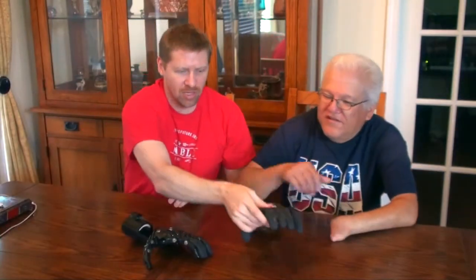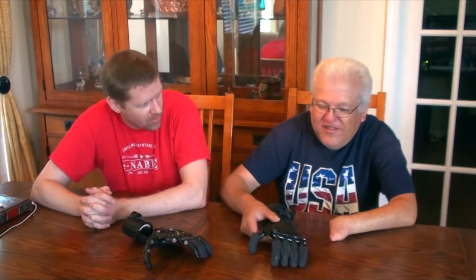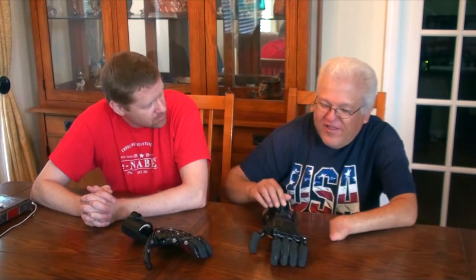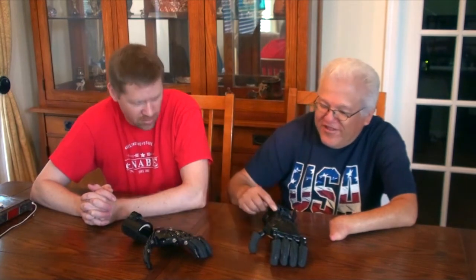Over the last few weeks, which of these have you found yourself relying on? The Osprey, yes, a lot more. So tell me more — other than the grip strength, is there anything else you like more about it? This one I like because it's got the cover, but I'd like to know how these are adjusted, because I could adjust these tension lines.